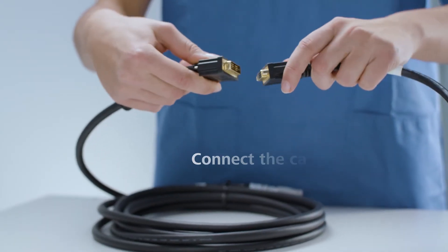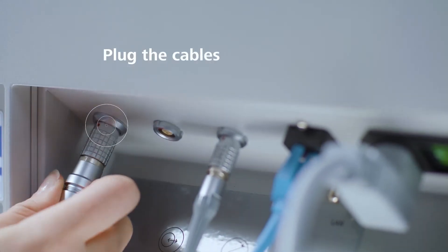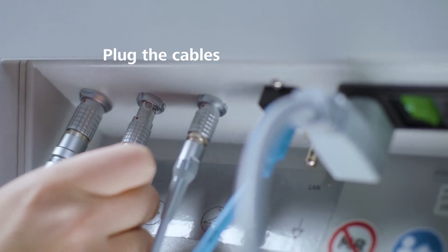Connect the adapter cable with a video cable. Then plug the adapter cable and the trigger cable into the connection socket on the connection panel of the Zeiss Convivo.